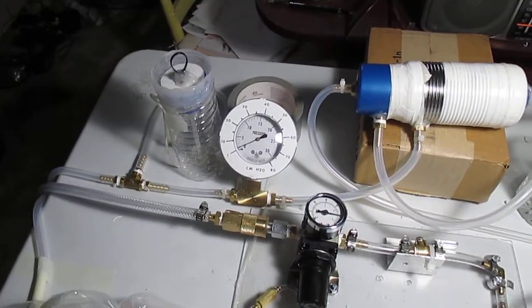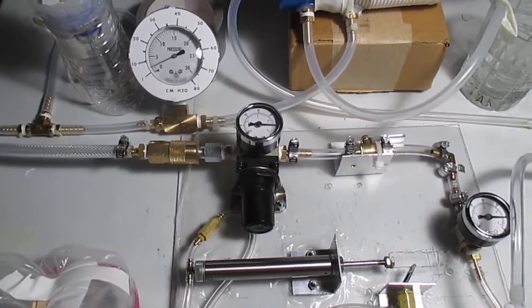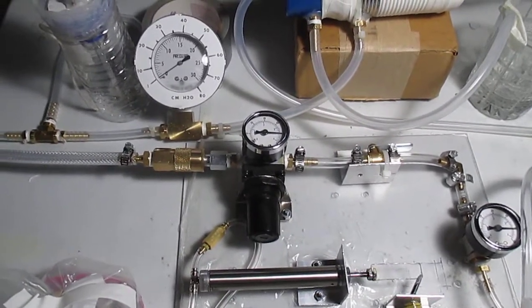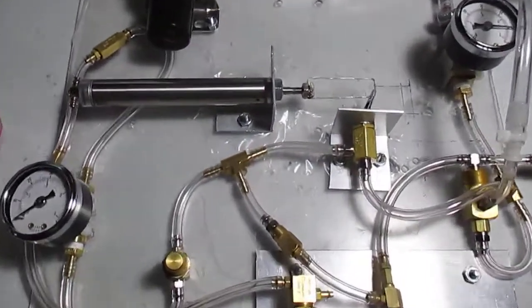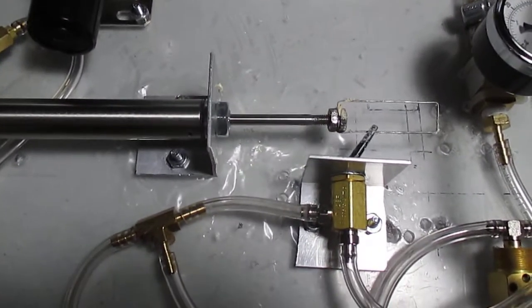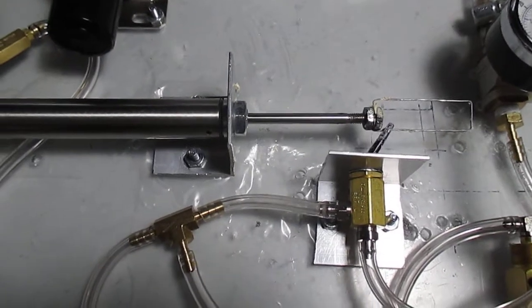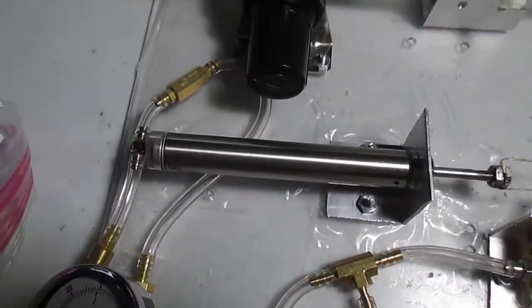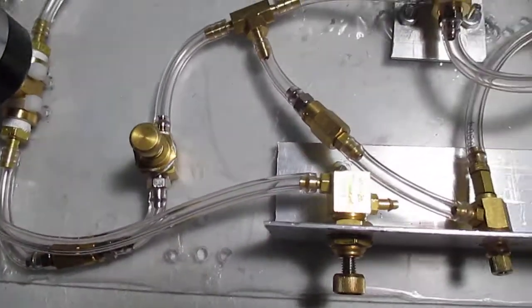A converted off-the-shelf pressure gauge, a regulator to simulate hospital DISS pipeline pressure, and the timing is obvious. A combination of valves and restrictors throughout the system and a check valve to smooth the operation gives me a very functional variable patient ventilator.